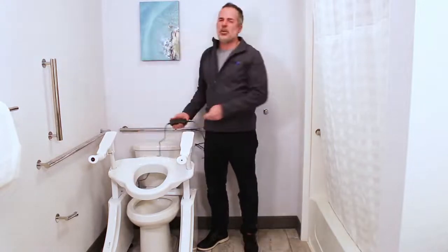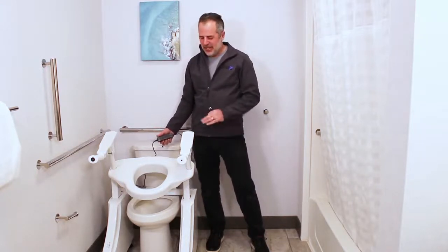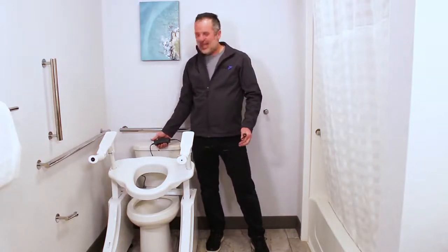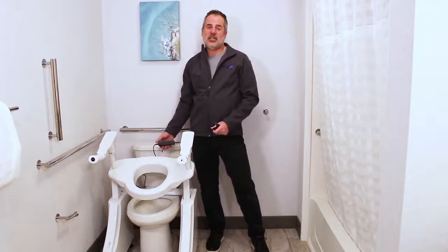This is the best of both worlds because it will keep your battery charged all the time. As long as power's on, you'll be working on the electrical side. But if your power goes out, you'll still have the battery backup for your lift. This is the Deluxe Dignity DL1 — it's kind of my favorite lift. So there you go — that's how to plug in and recharge your Dignity Lift DL1.